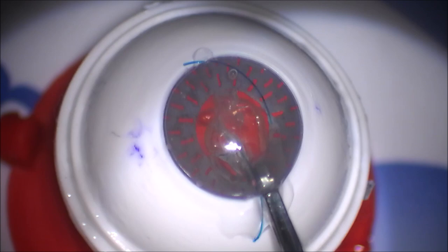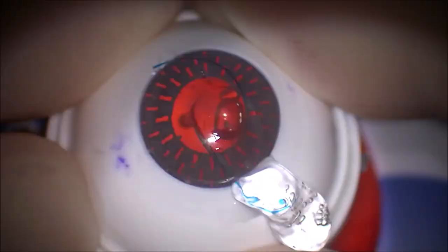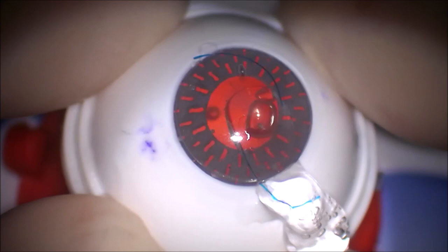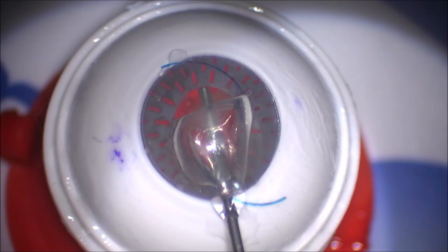I want you to know that's not because of a manufacturer's defect. That's because I actually pulled off the top because I wanted to reuse the model multiple, multiple times. And I had all of these lenses that I pushed down into the vitreous, so I wanted to take all those lenses out. But this is not designed for that. Stuart Stoll told me you're not supposed to pull off the top when you do that. It actually has glue that holds it all together. So he does not recommend pulling off the top.